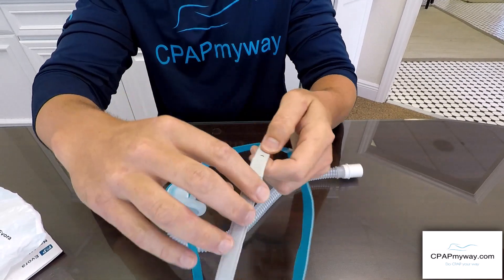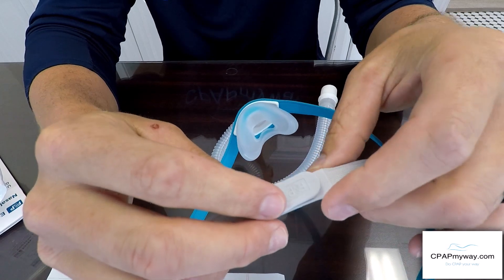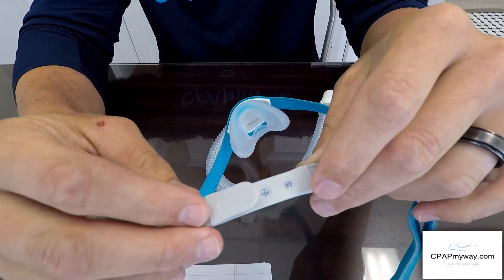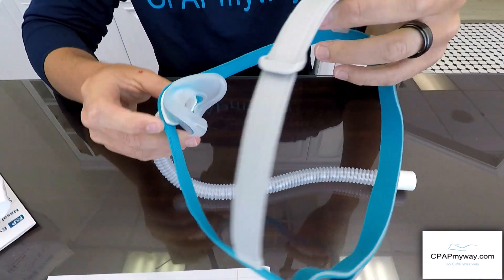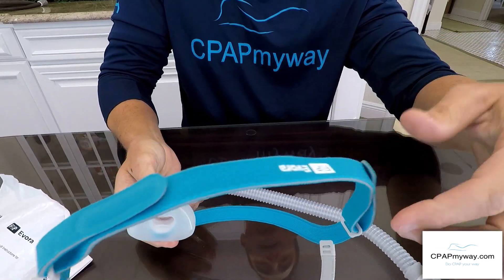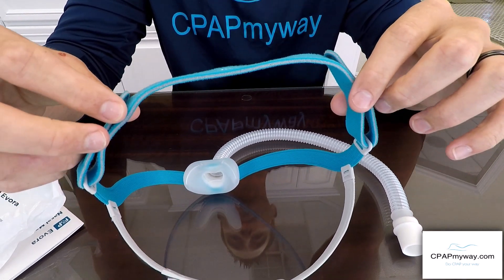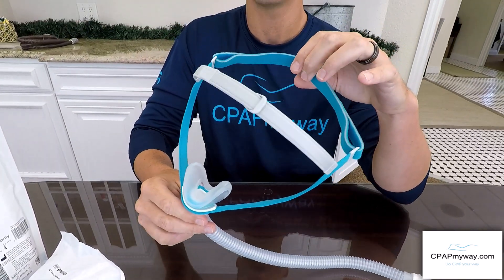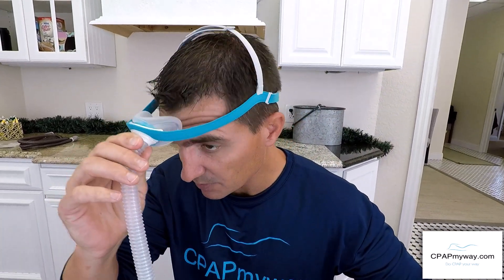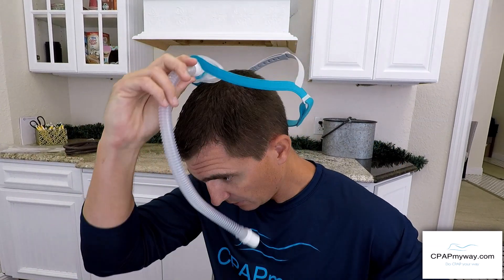The ball cap design is designed to literally pop loose like the back of a snapback hat and can be adjusted for the size of your head. I have a little head so I adjust it all the way out to the smallest size, and on the back you've got two head strap adjustments that allow you to tighten it up on the head. Once adjusted, it literally just slips on like a baseball cap — you put it right over the back of your head, flip it on, and you're wearing the mask.